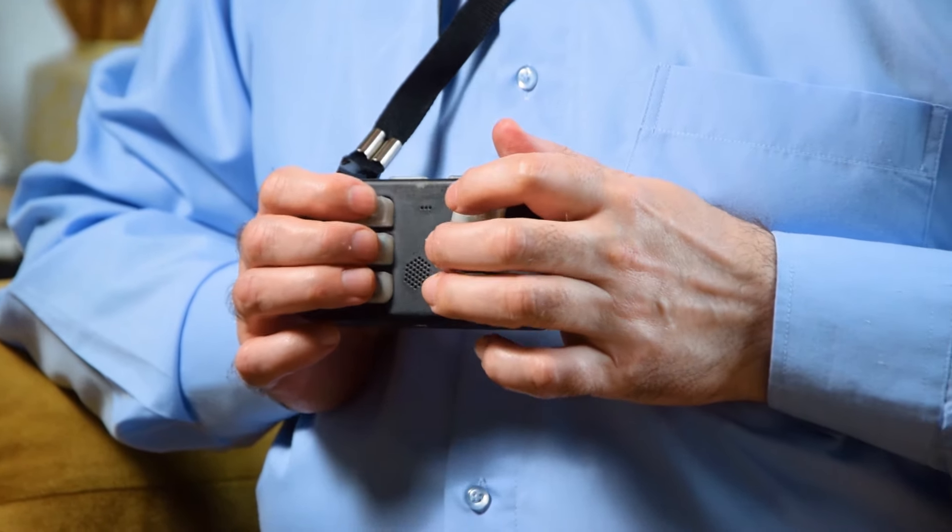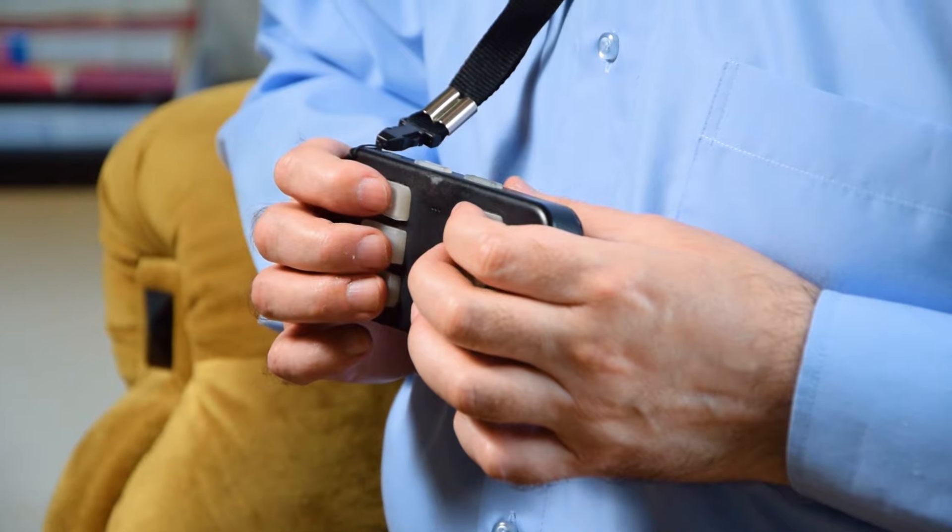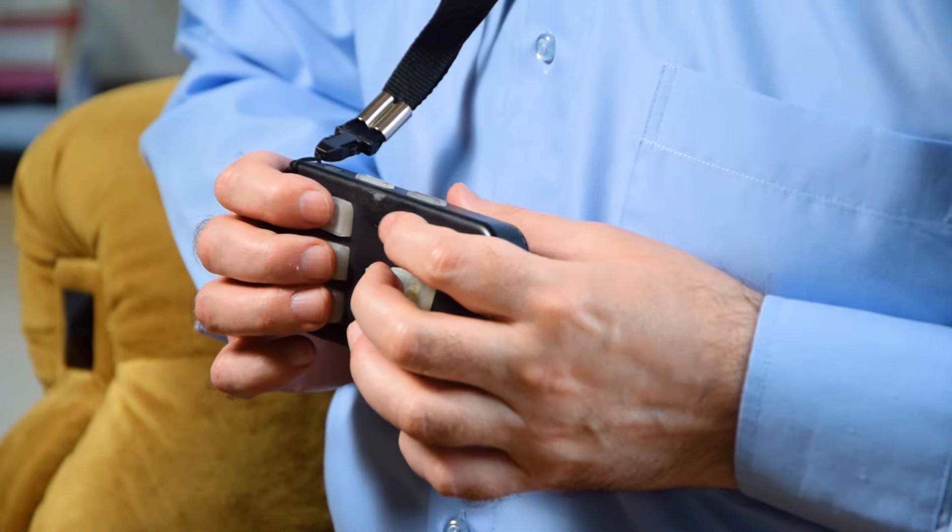The communicator is a small box the size of a cell phone. On the front panel there are six keys. These keys represent the Braille dots. On each side of the keyboard there are numbers indicating the order of the keys and the dot to which they correspond.